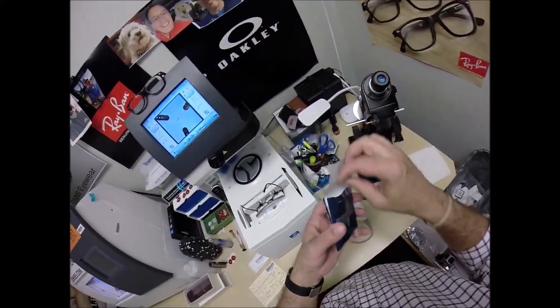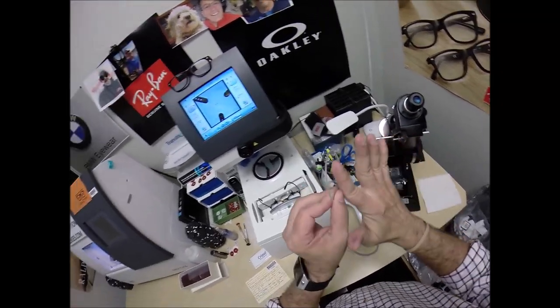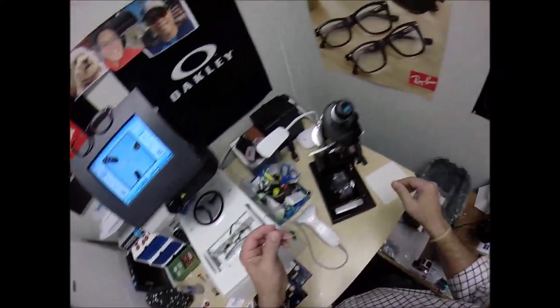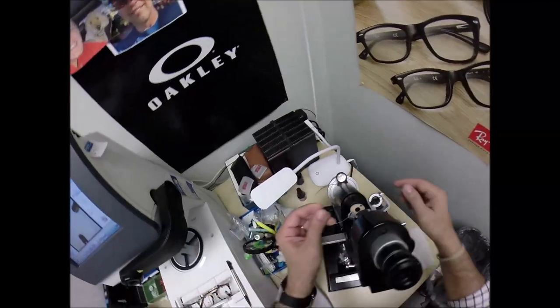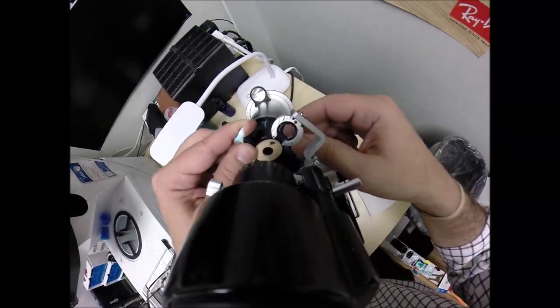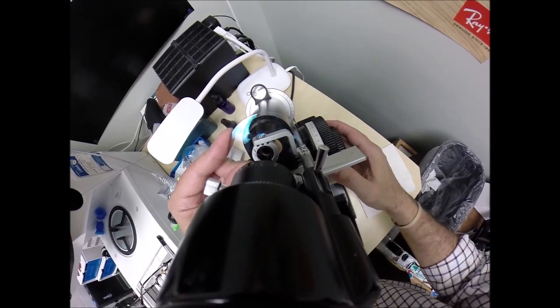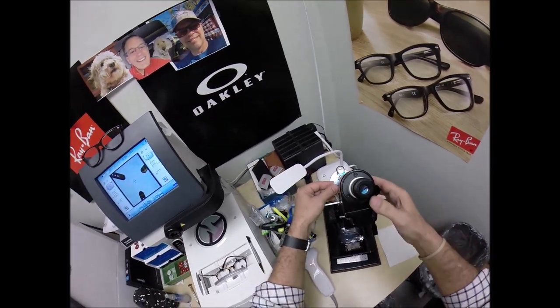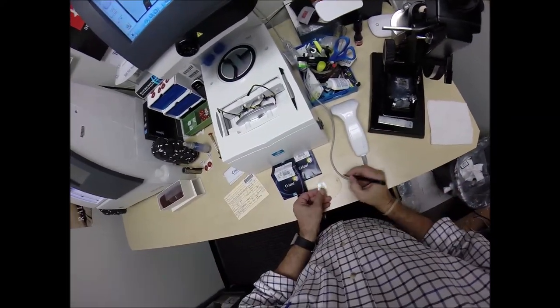Now I can take the lens out of the protective sleeve. It comes with a little laminate on the front of the lens to protect the front surface during shipping — that is no longer needed. We're at minus a quarter, minus a quarter, minus 50 at 100. Put the lens in. Rotate it until the spherical component of the prescription comes into view first. Check your astigmatism correction. I'm going to put three dots on your lenses, and I'm going to mark this one R for right.